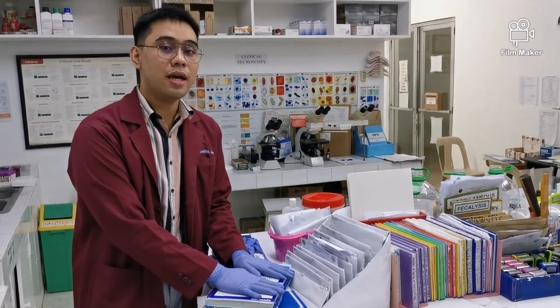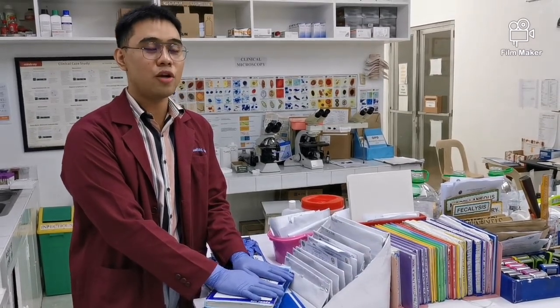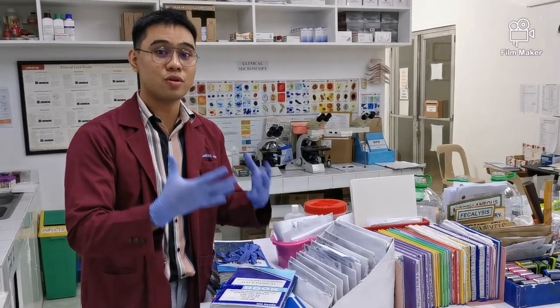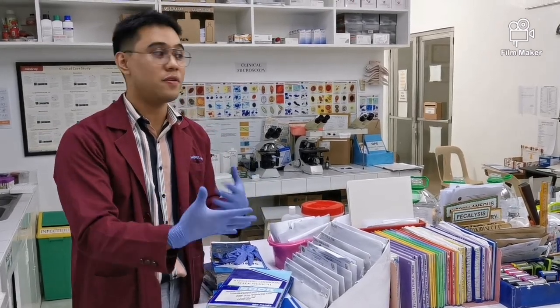So this is our turnaround time that I mentioned. What again is our turnaround time? It is the time it takes for us to produce a result. Okay? Which is very beneficial to our patient.